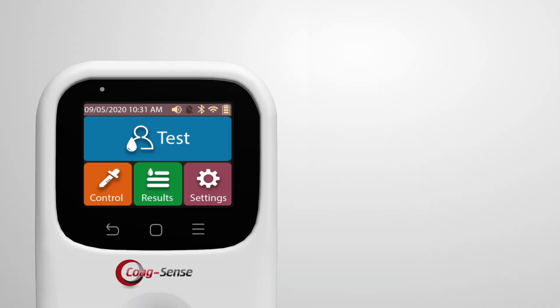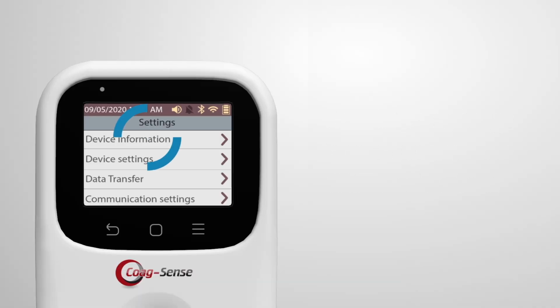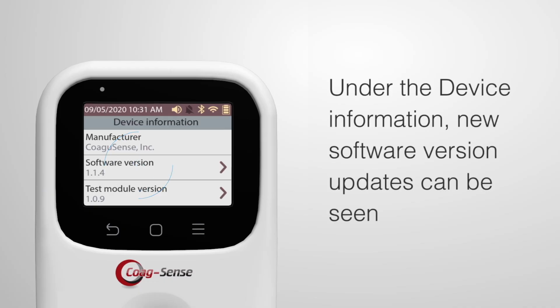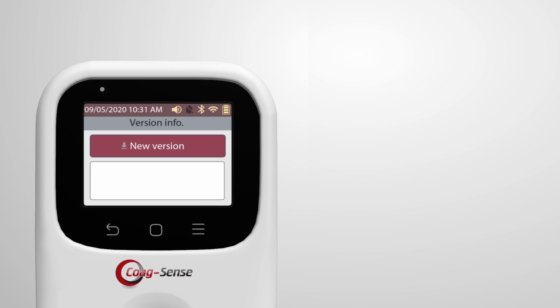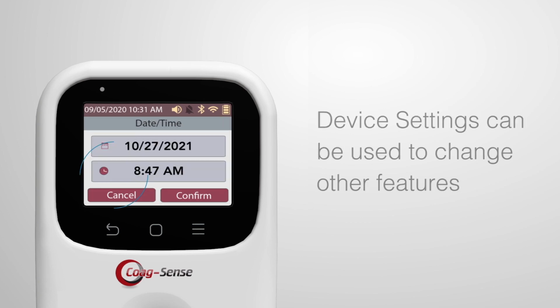Meter setup. Touch the settings icon to access the different features. It is a good practice to periodically connect to a local Wi-Fi network so that under the device information, new software version updates can be seen. Device settings can be used to change other features, such as date time.